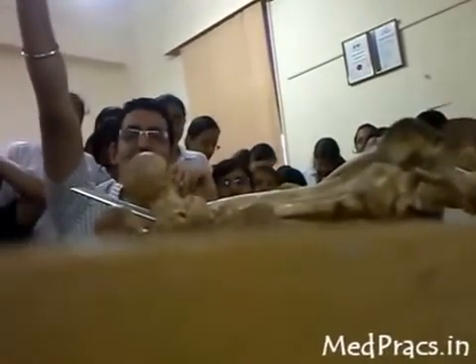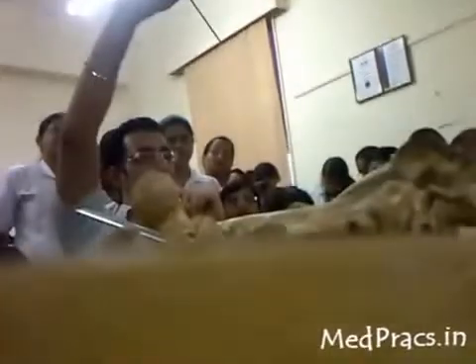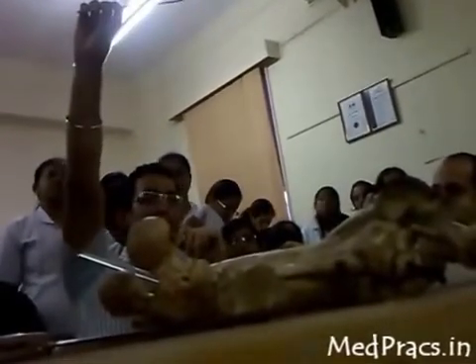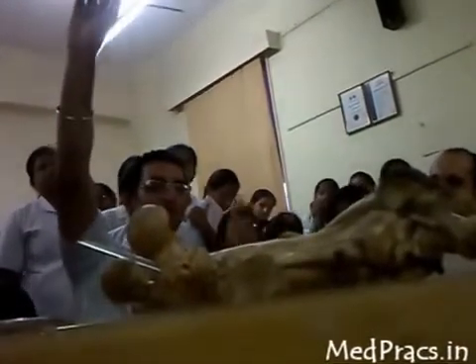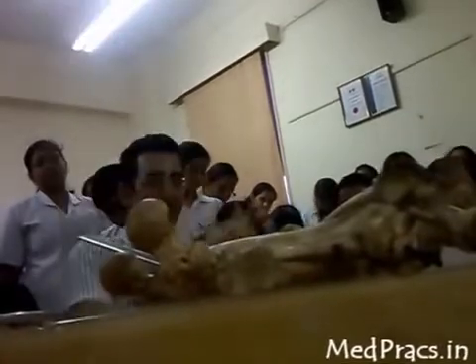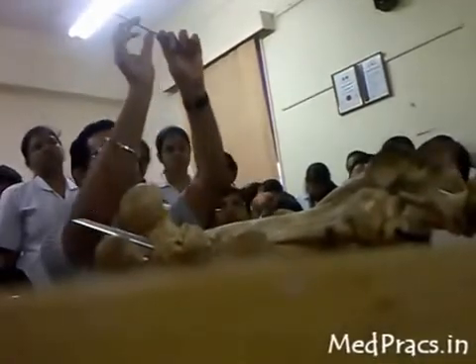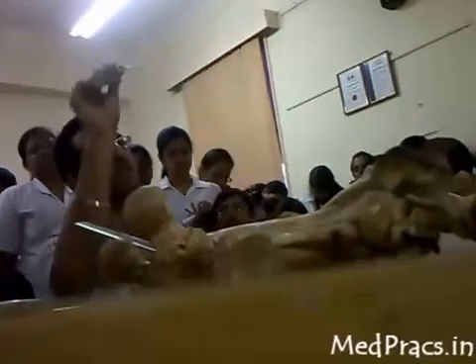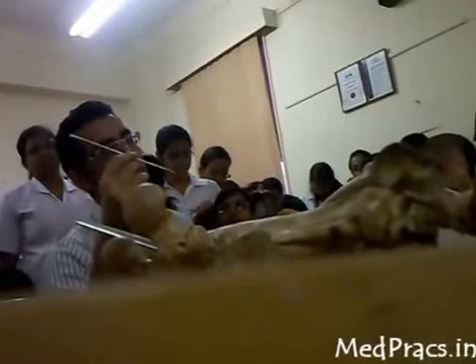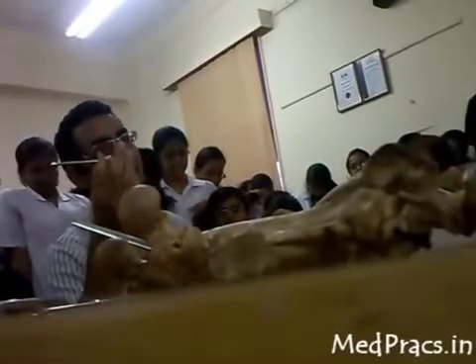The Steinmann pin comes from Switzerland (SS). Its uses include skeletal traction. The corresponding pin is the Denham pin (D-E-N-H-A-M). The Denham pin differs from the Steinmann pin in that it is threaded in the middle portion, making it suitable for cancellous or osteoporotic bones and calcaneal fixation. The Steinmann pin is smooth, used in young patients and in cortical areas. Steinmann pin uses: skeletal traction, delta frame for compound ankle fracture stabilization (combined with Schanz pins and connecting rods), and central fracture-dislocation of the acetabulum.